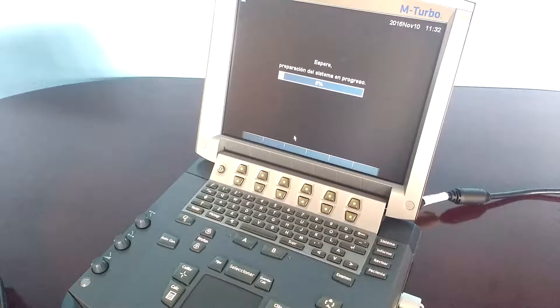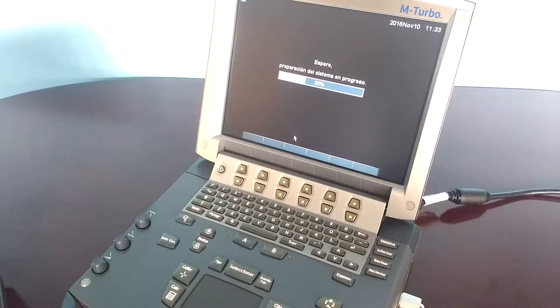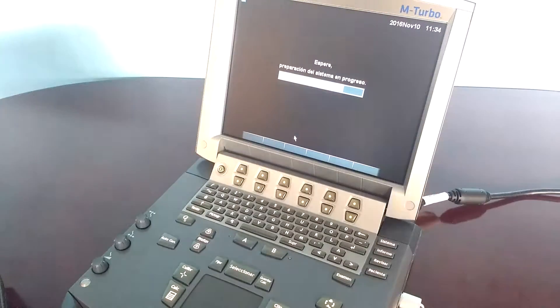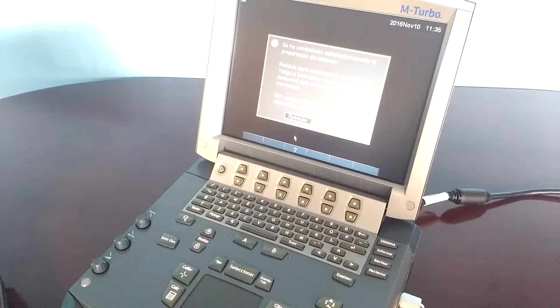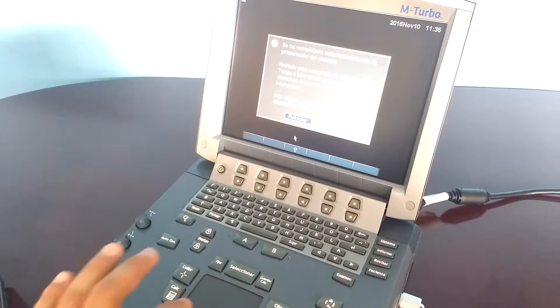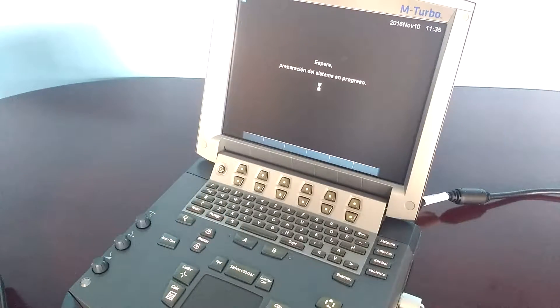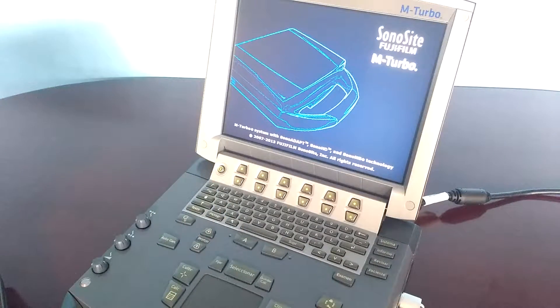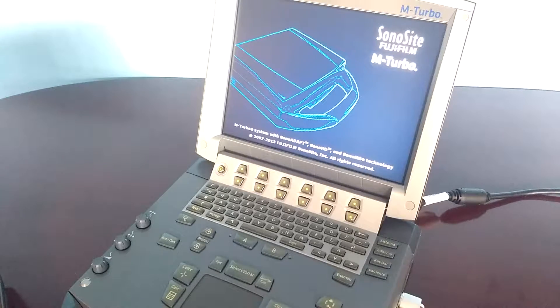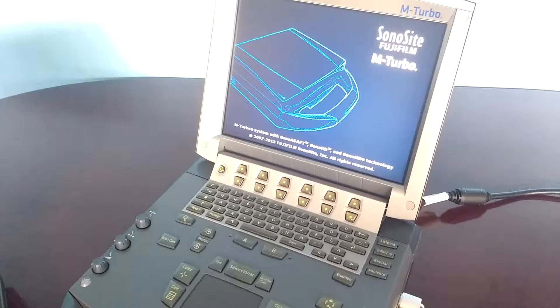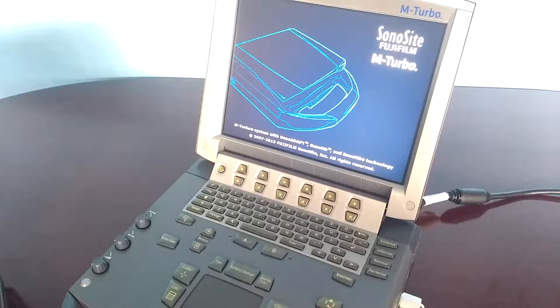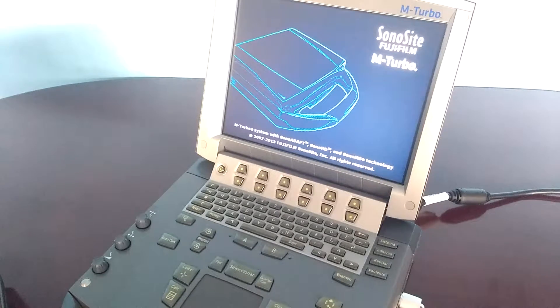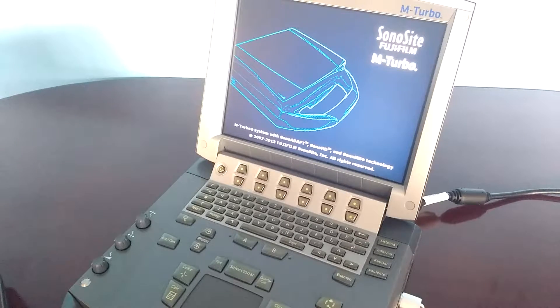I'm going to speed up the video to make it shorter. Click on reboot. The system will reboot and it will take longer than normal. Please wait. Any interruption of this process will damage your system.